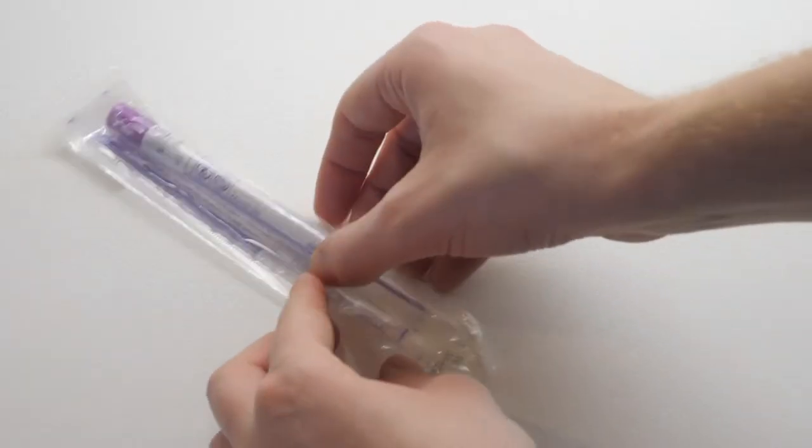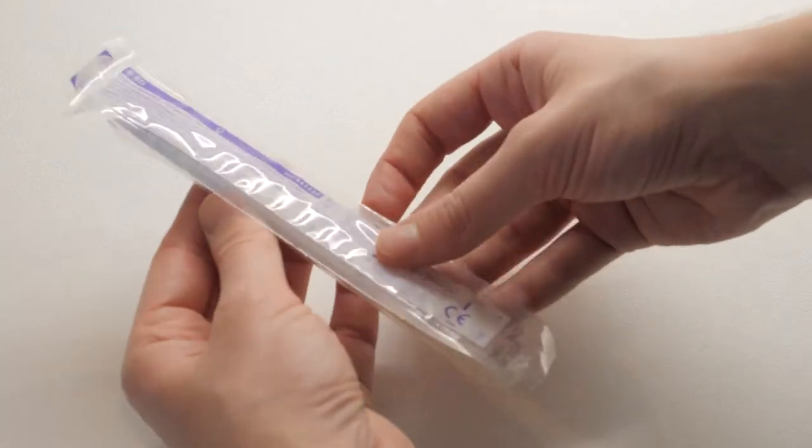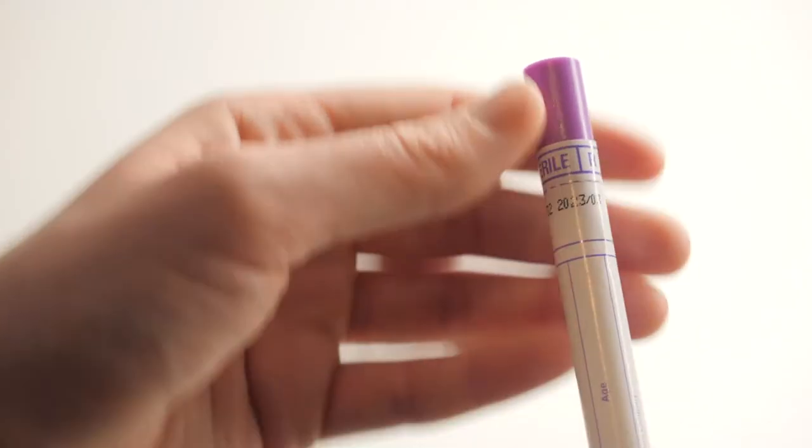Please note, vaginal swabs do bear an expiry which should be checked by every provider just prior to dispensing.